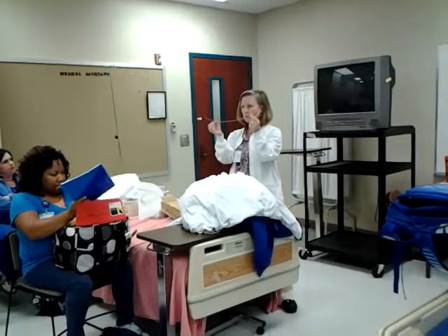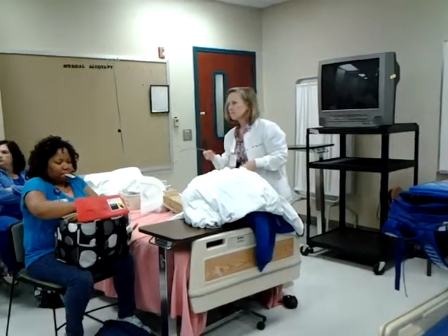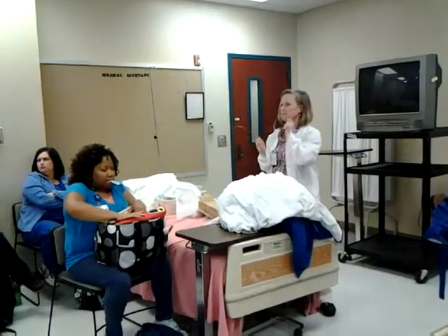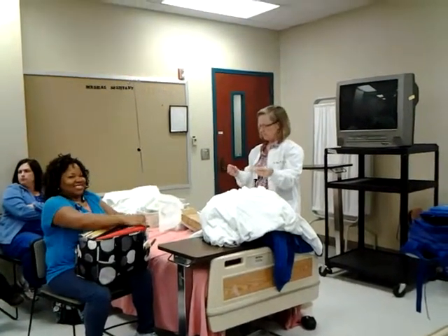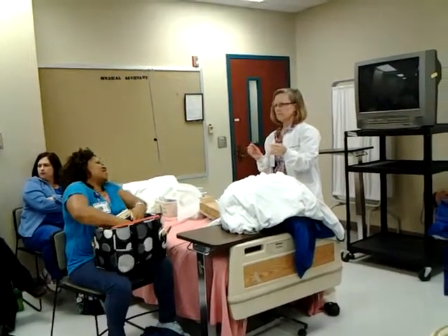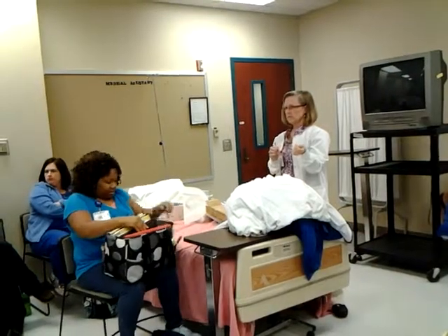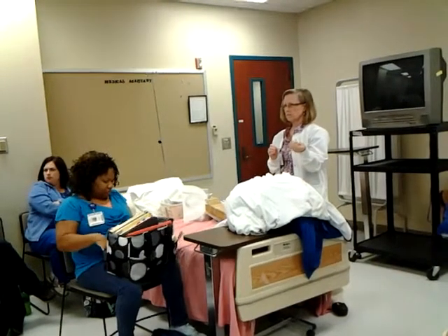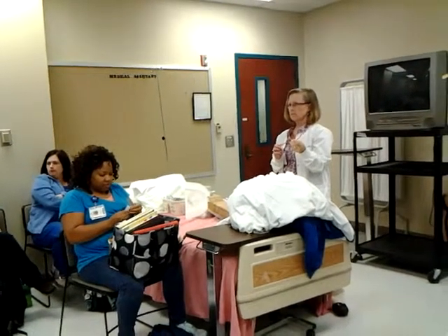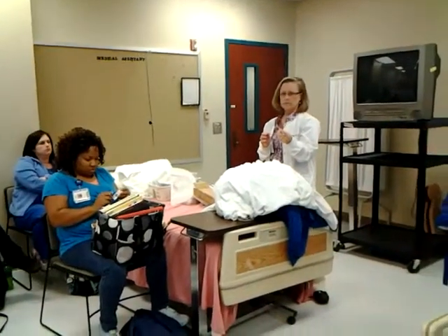It's only one lumen, so this could not stay in the patient. Some people do in-and-outs on themselves — that's the way they have to manage. If the sphincter isn't performing like it should and it's slammed shut and you can't urinate, the urine backs up into your kidneys, then into your bloodstream, and pretty soon you're going to die. Very serious issue.